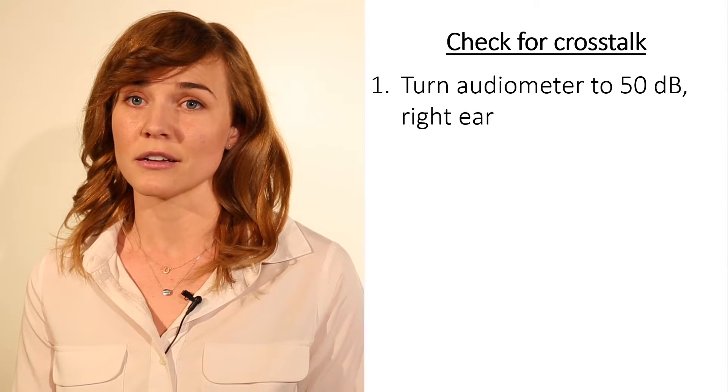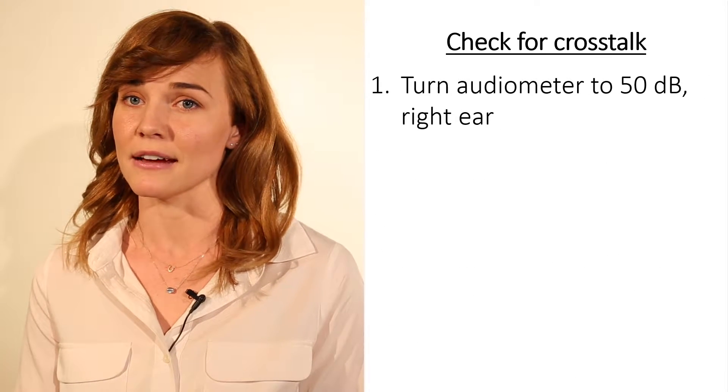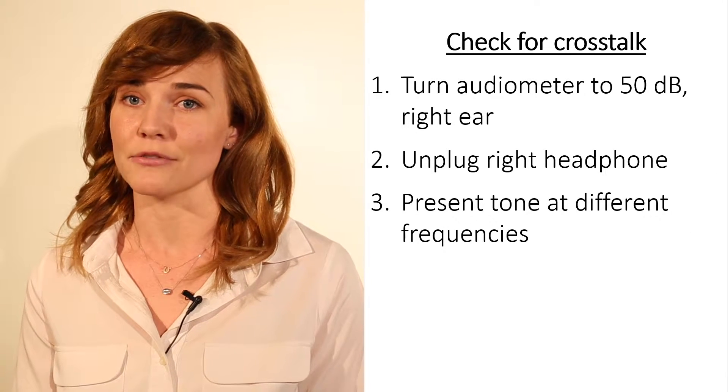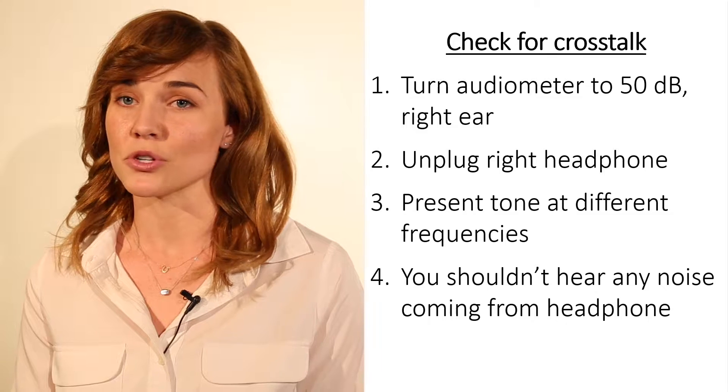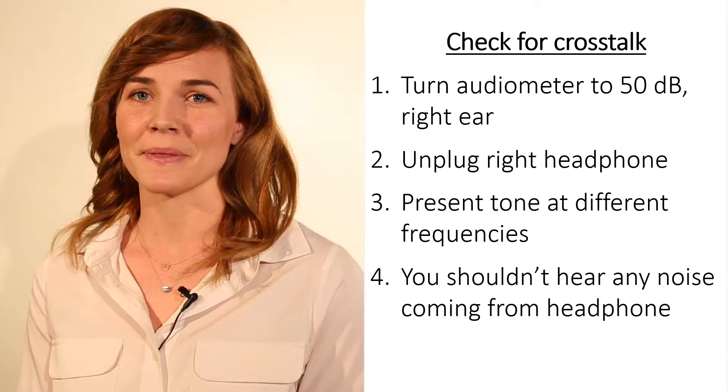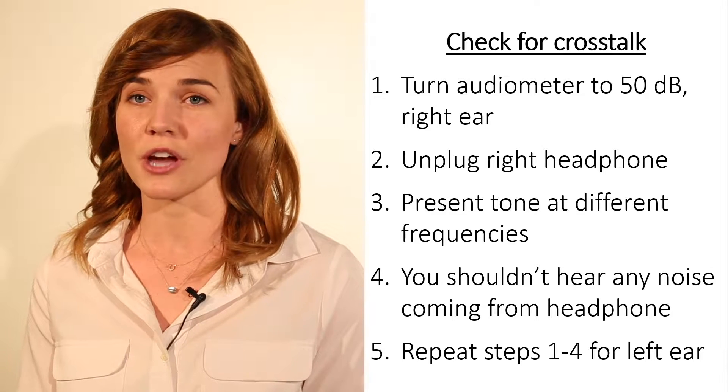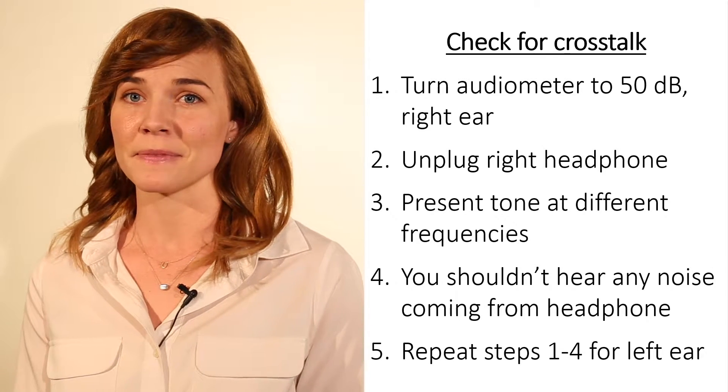To check for crosstalk, switch the audiometer to the right ear, unplug the right headphone, and present the tone at different frequencies. You shouldn't hear anything. Plug in the right headphone, unplug the left, and switch the audiometer to the left ear. Repeat the test.